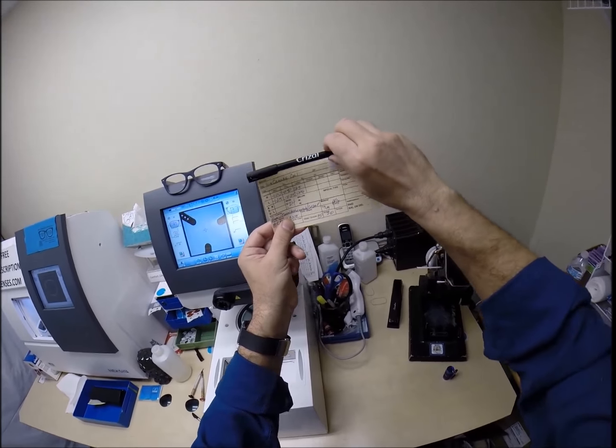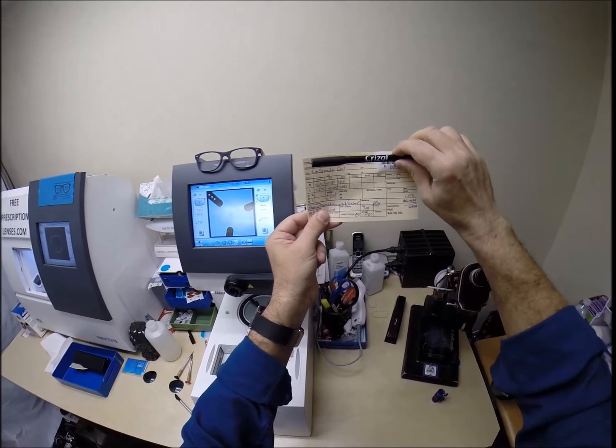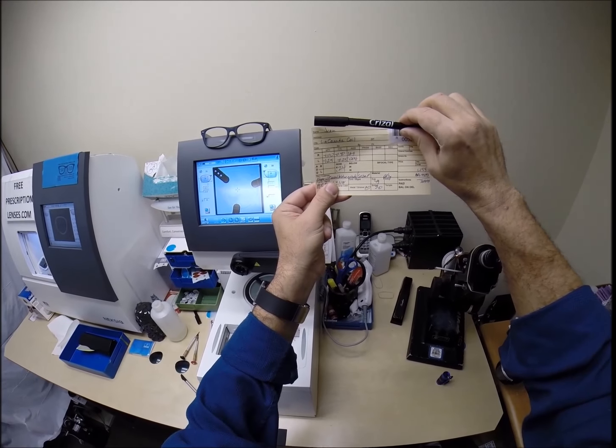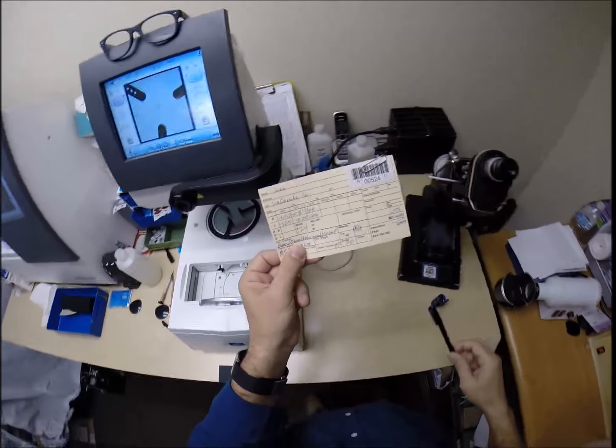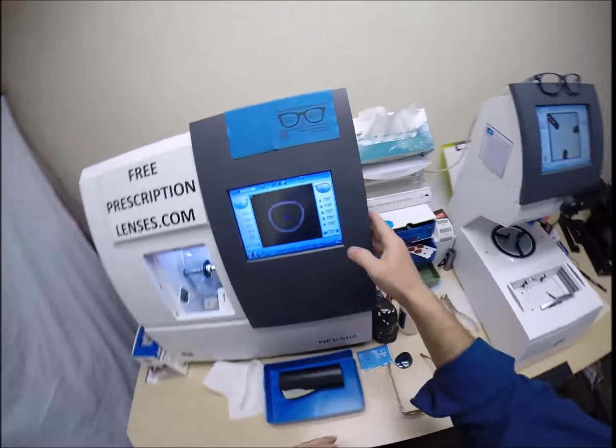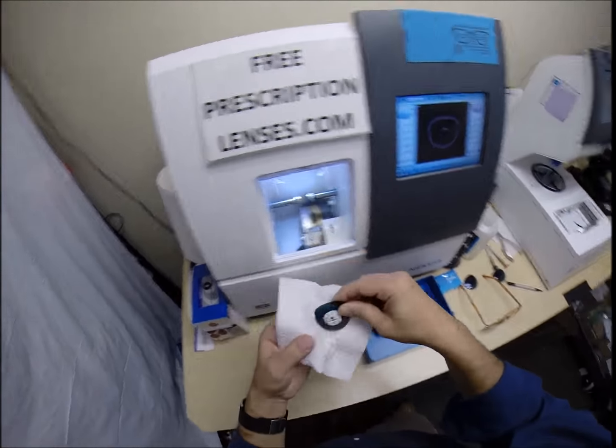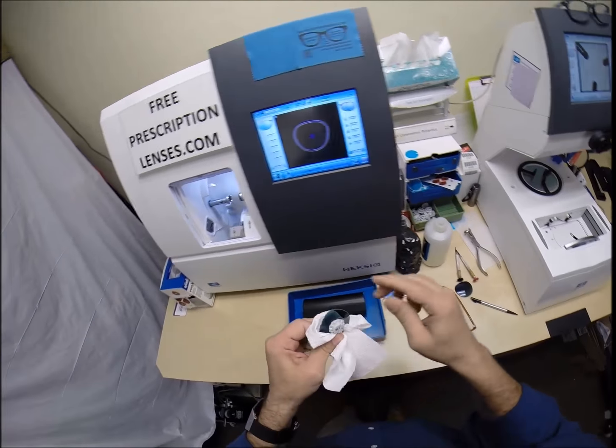But you only need one step of astigmatism correction. But we're still going to end up at a combined value of 150, same power as you had for the right. That's actually very rare. This last number could be anywhere from 0 to 180. These first two numbers are real values to be concerned with. Although, on a straight line, 0 to 90 to 180, for your right eye, you're on the 169th meridian. So, you're 11 degrees away from 180. Your left eye, you're at 4 degrees away from the 180 meridian. So, really, there's only 7 degrees of separation in your astigmatic correction.